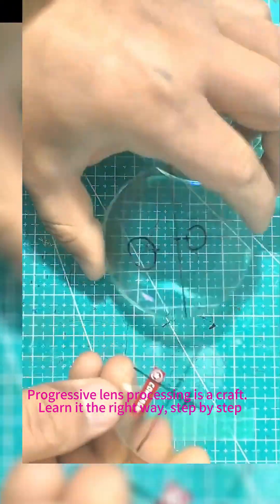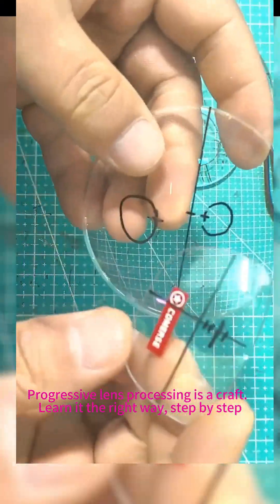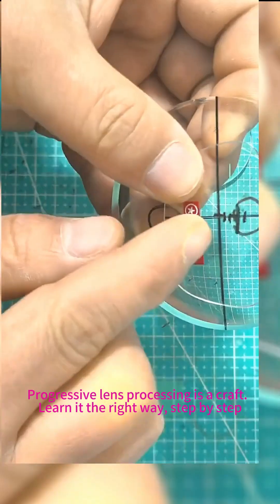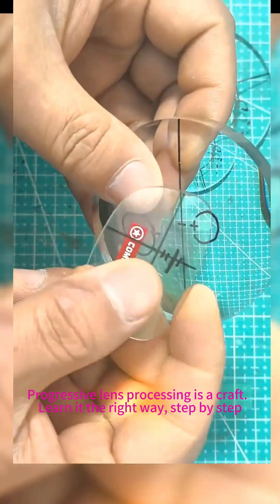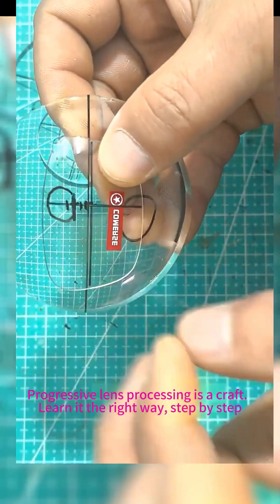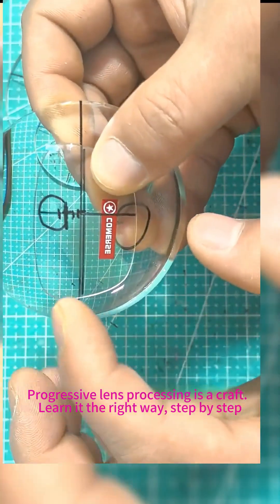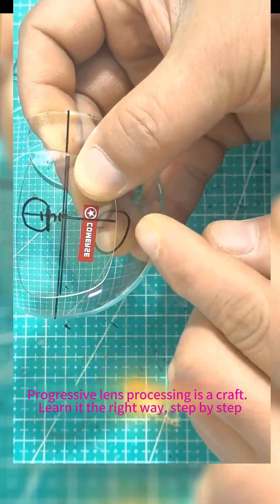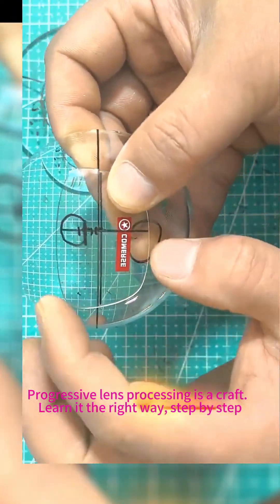When processing progressives, always verify alignment first. Channels must stay within the target circle based on their visual habits. Never cut into the upper or lower optical zones when trimming.